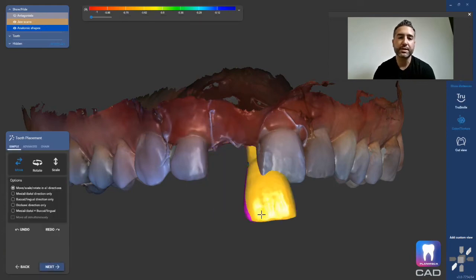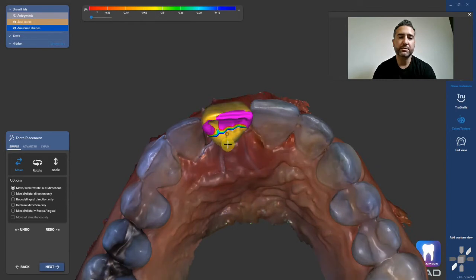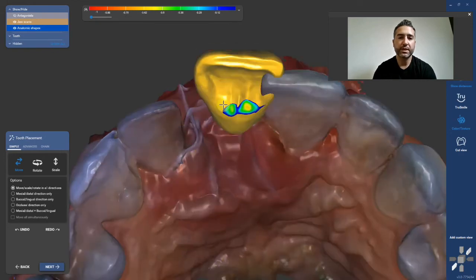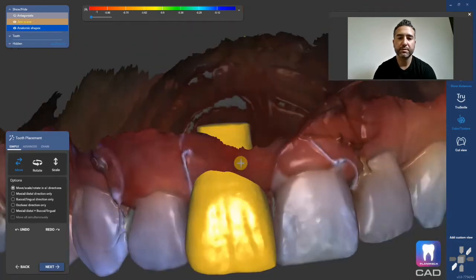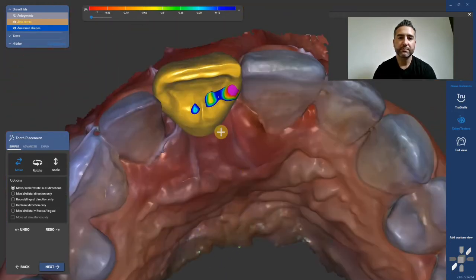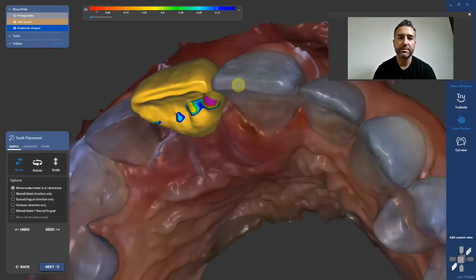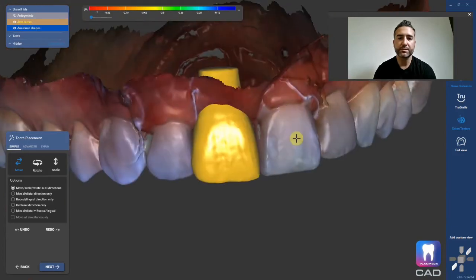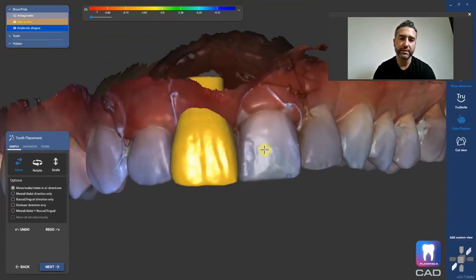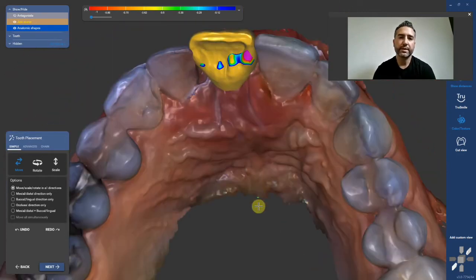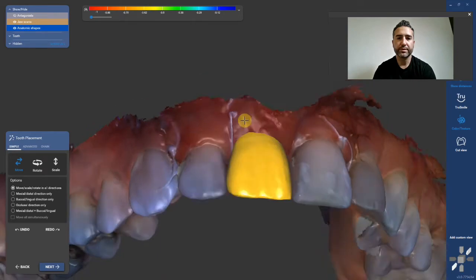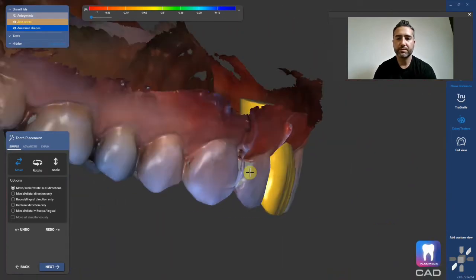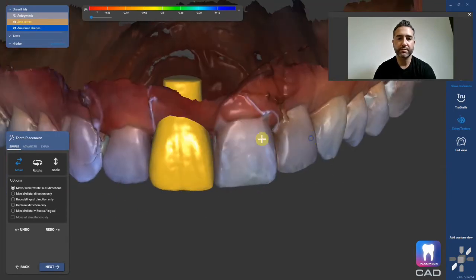It's okay that it's crooked because at the next stage you have a floating tooth. Your hotkeys: control rotates, shift expands and shrinks, clicking and moving it, and control-shift will stretch it like rubber in the direction of your arrow. That's basically what I'm going to do to get it in alignment. You could also very easily mirror-image this tooth, but I don't want to today. I'm going to go ahead and shrink this just a little bit. That's looking pretty awesome — maybe just pump that out just a little bit. I love this. Let's go ahead and hit next.